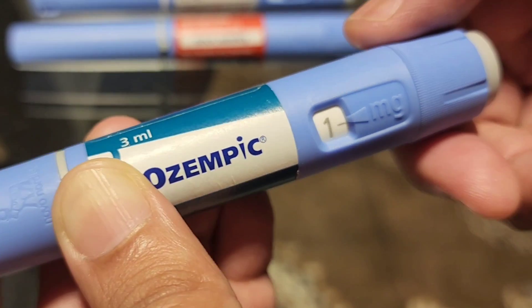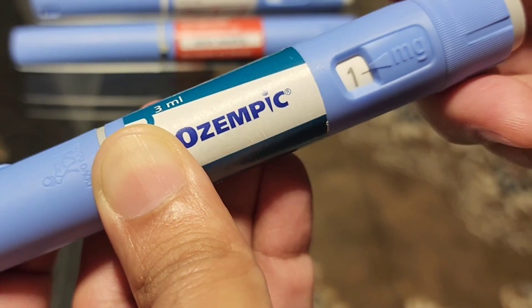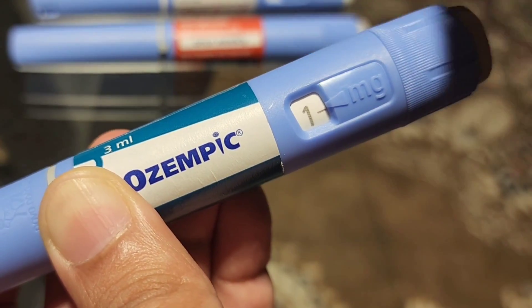I hope that helps. Make sure you use a new needle for each dose administration. Thank you.